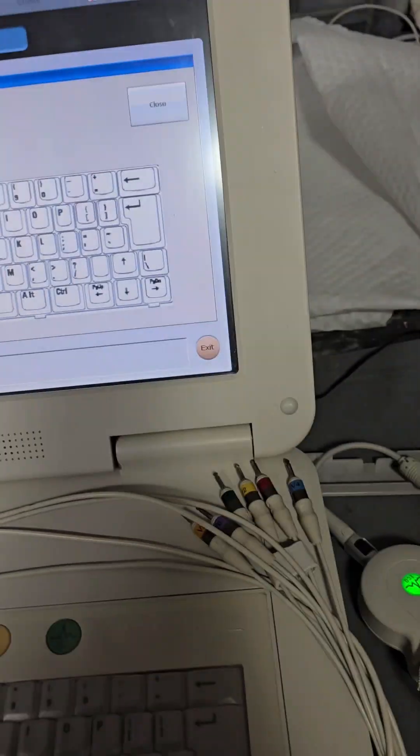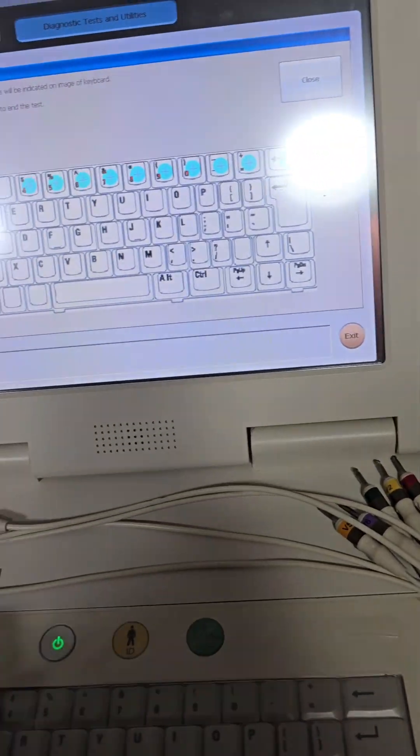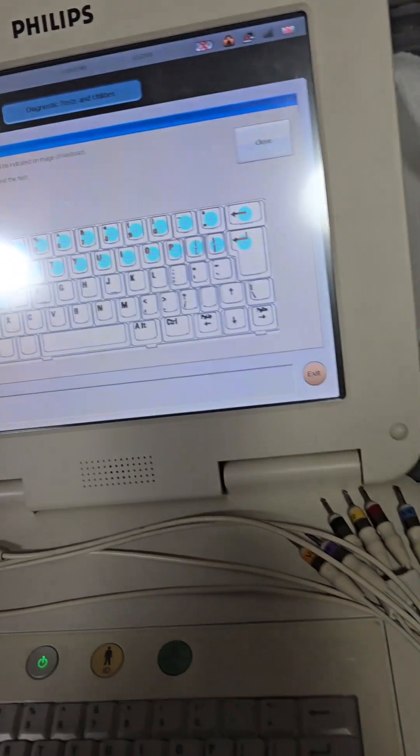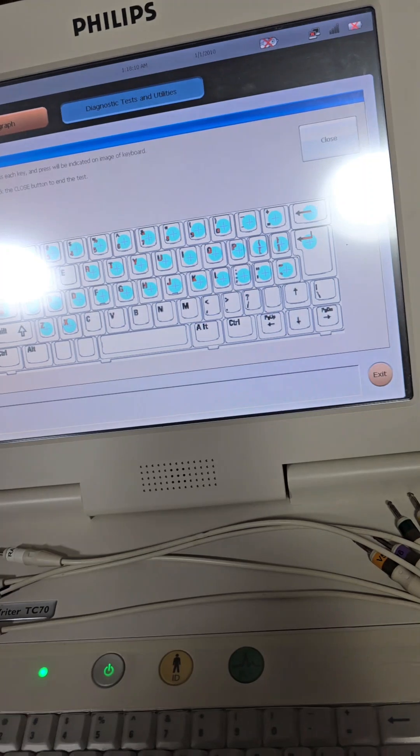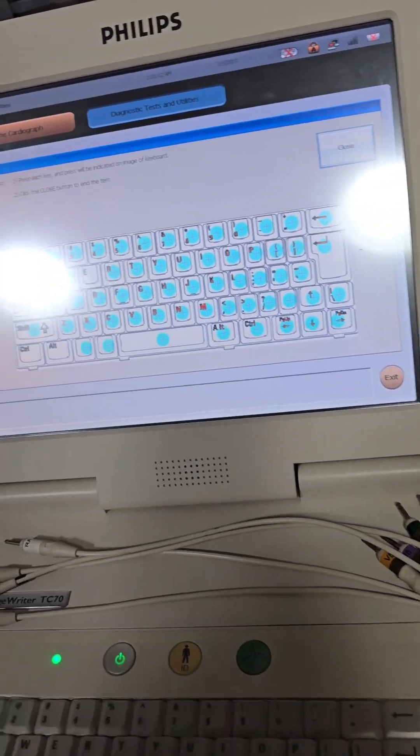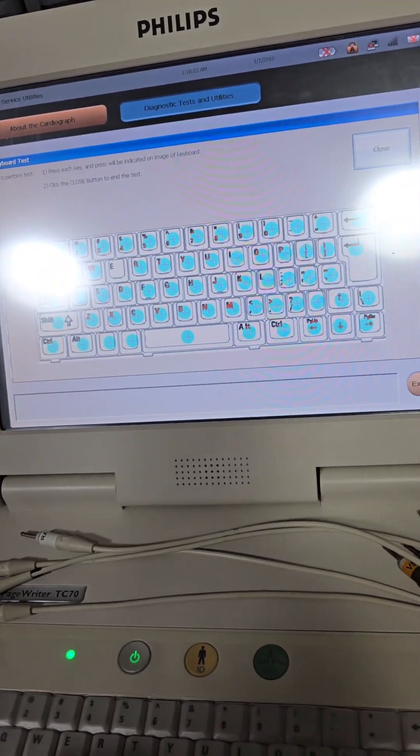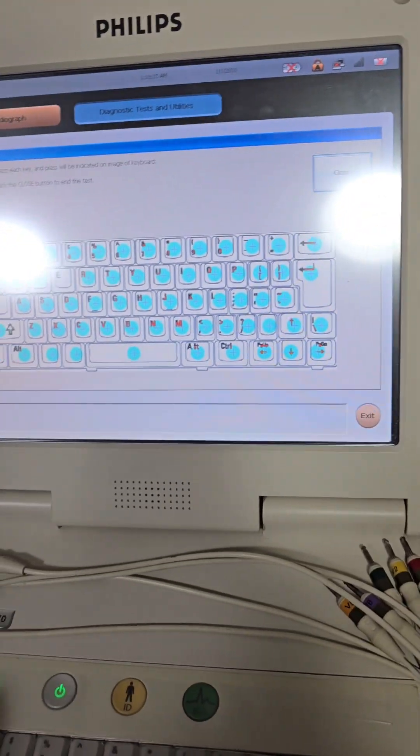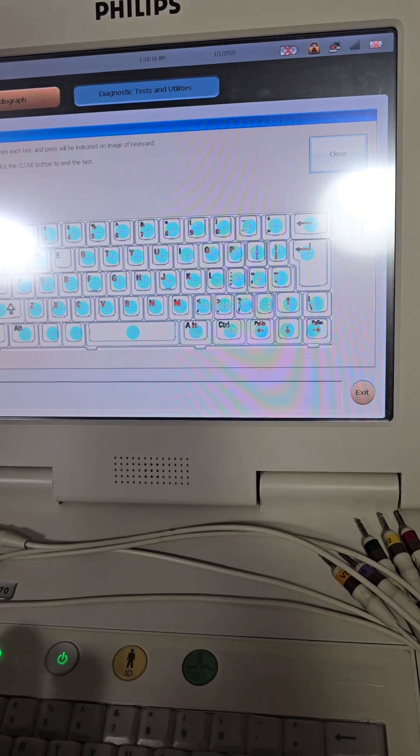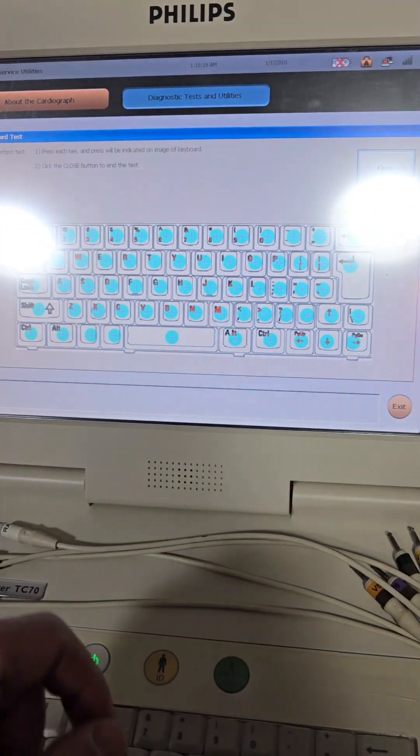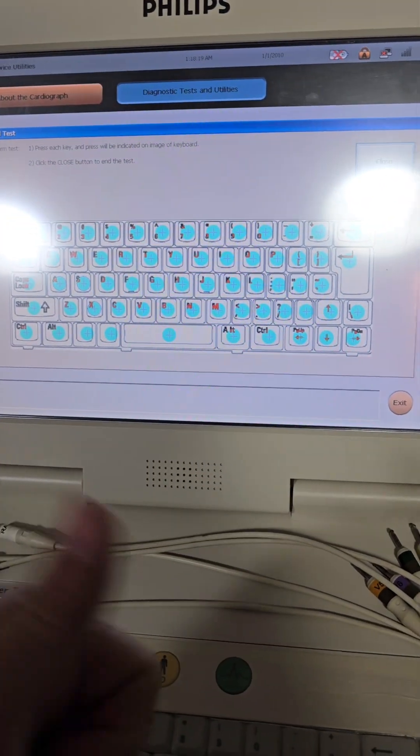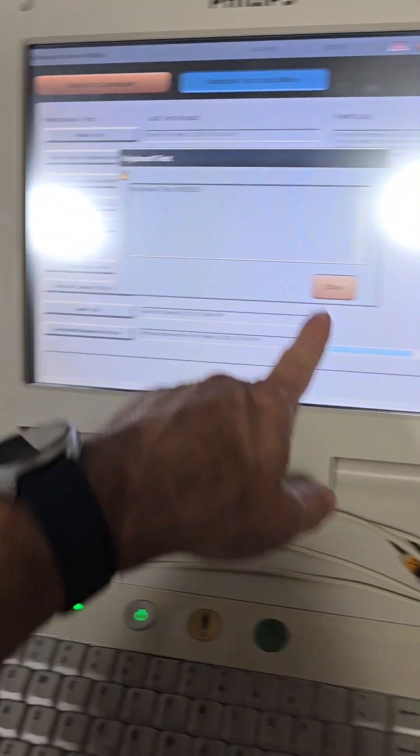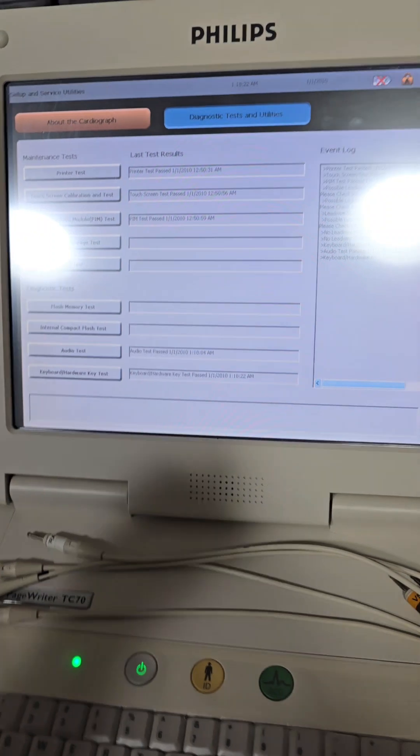And keyboard tests. It's a good one. Ever seen those G-E-E-K-G's? The keyboard is the main failure. Every time on that junk. That's everybody. Tab and E. Keyboard looks good. Keyboard tests pass. Yay! That's everything.